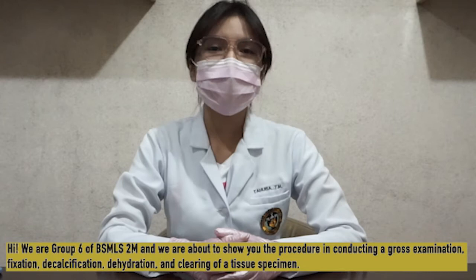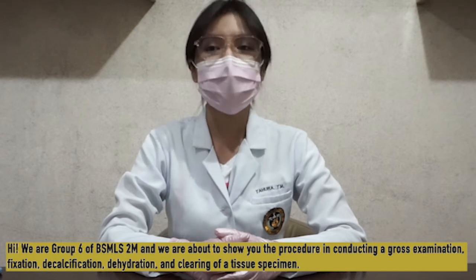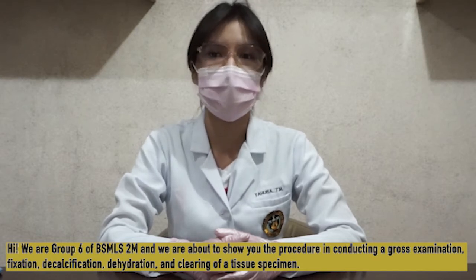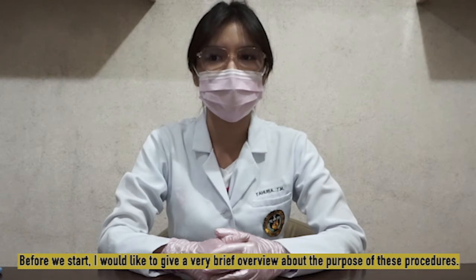Hi! We are Group 6 of BSMLS 2M and we are about to show you the procedure in conducting a gross examination, fixation, decalcification, dehydration, and clearing of a tissue specimen. Before we start, I would like to give a very brief overview about the purpose of these procedures.